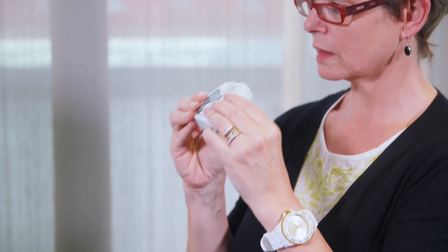Either sitting or standing, with your head held upright, breathe out gently. Do not breathe out into the mouthpiece. Hold the mouthpiece at right angles to your mouth and place between your teeth. Close your lips around the mouthpiece and start inhaling slowly and deeply.